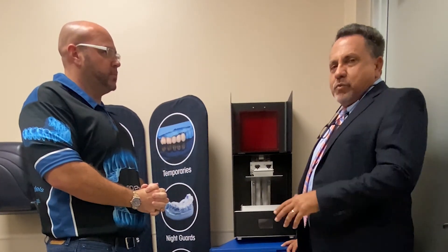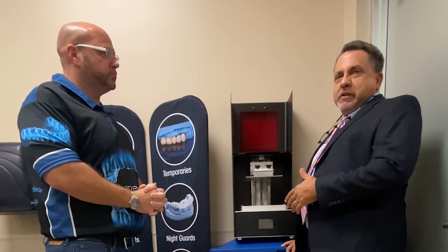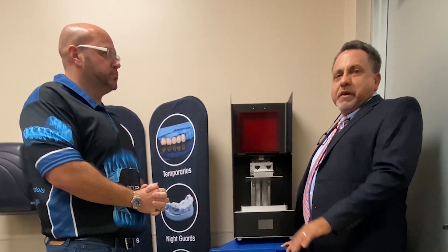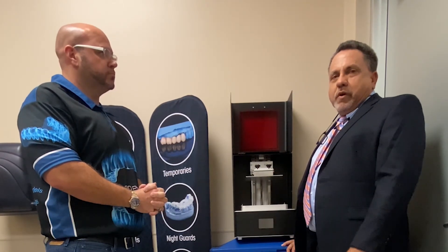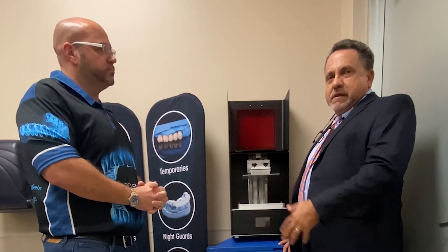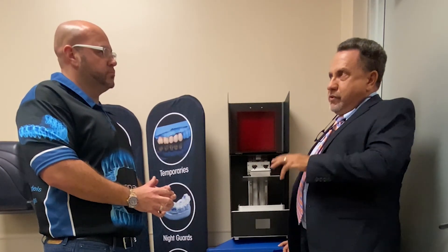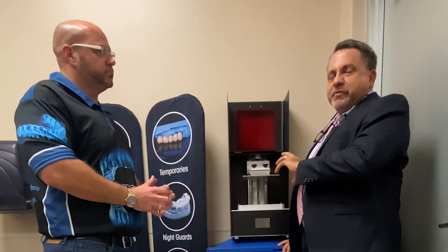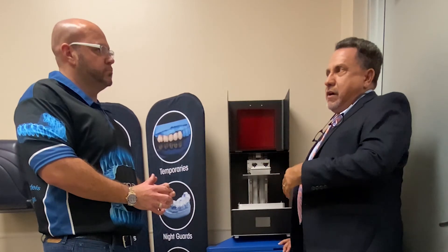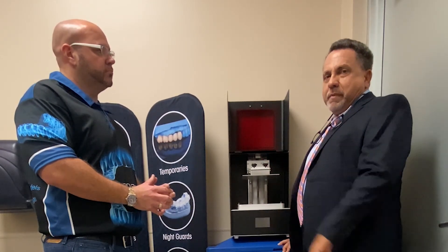What we teach is clear aligners. Clear aligners is a huge market right now — about a nine billion dollar market with companies like Invisalign and Smile Direct. We teach doctors how to do aligner therapy and create everything in-house, printing the models themselves, so they can create aligners in-house, reduce cost, be more efficient, and work faster for patients.